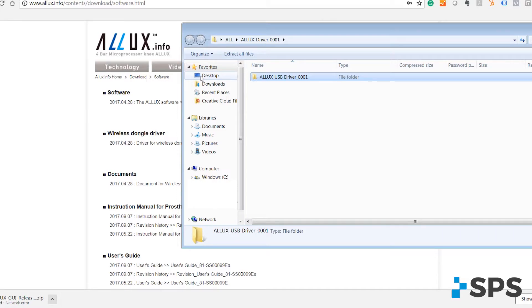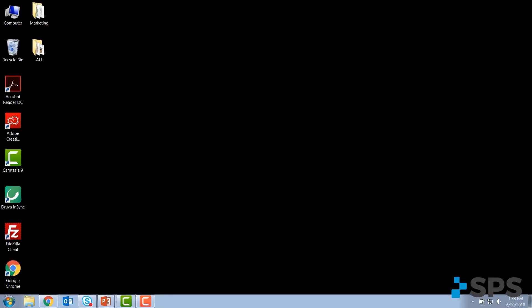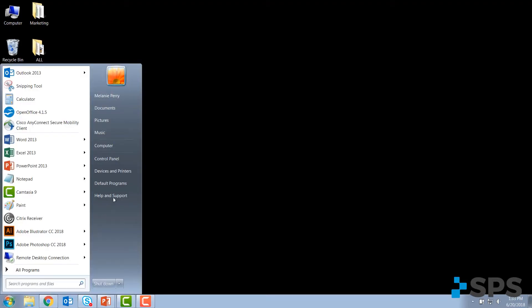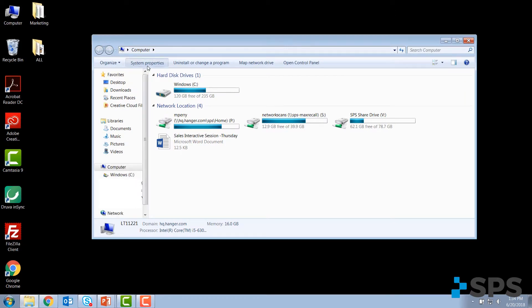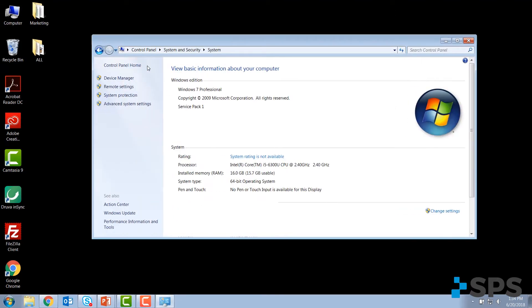A simple way to find which version you have is hit your start menu, select my computer, and then go to properties. In the middle of the screen you'll see that the system type is 64-bit.